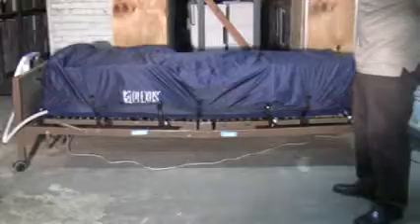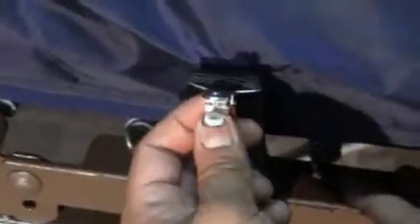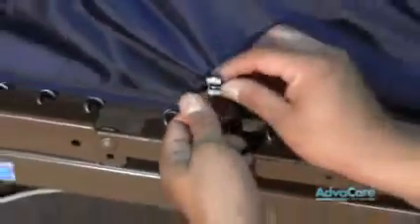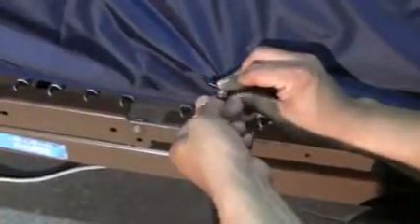That is the setup of your safety bolster top sheet applied to your Plexus mattress. This clip is for your top sheet or flat sheet. If a top sheet or flat sheet is used to cover your low air loss mattress safety bolster system, you can simply pinch the sheet in between and clamp that down. Doing that motion on all four corners will help to secure your top sheet from moving.